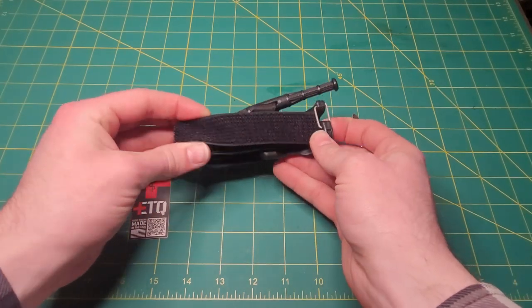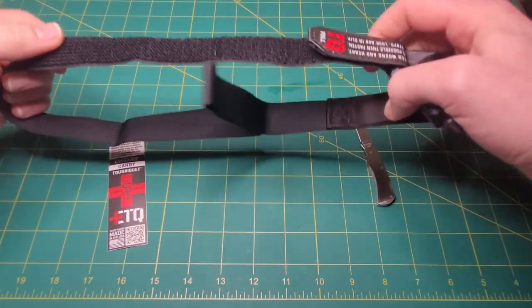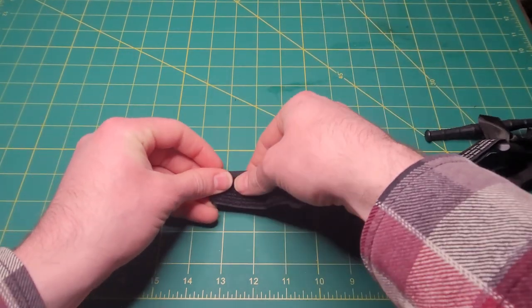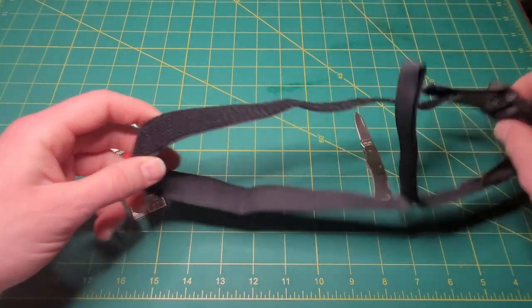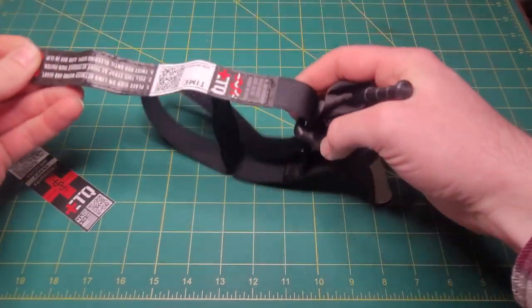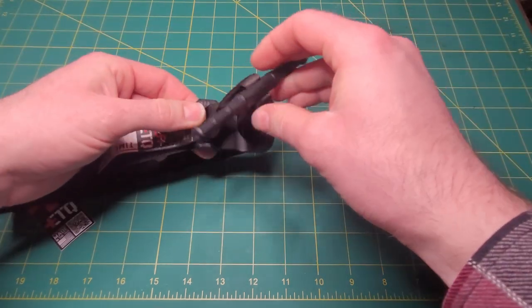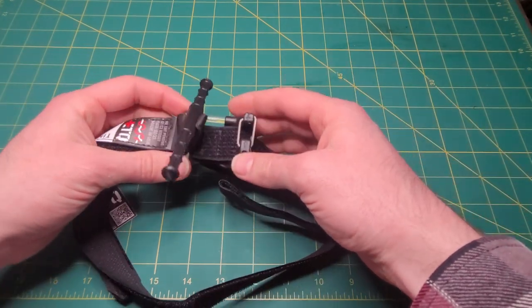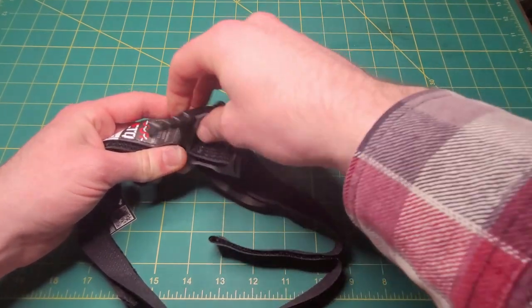Initial impressions: this is all hook-and-loop right here for the strap. On the website they say it's about a one-inch strap, and on my measuring table here it checks out right at one inch, so that's great. This buckle here is made out of polymer with a spring-loaded clip.